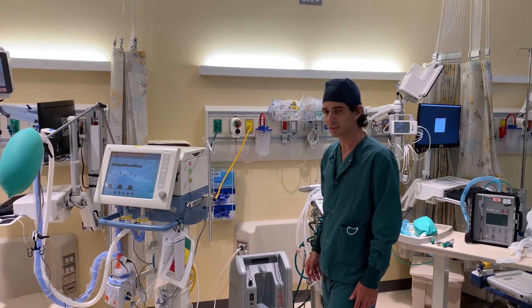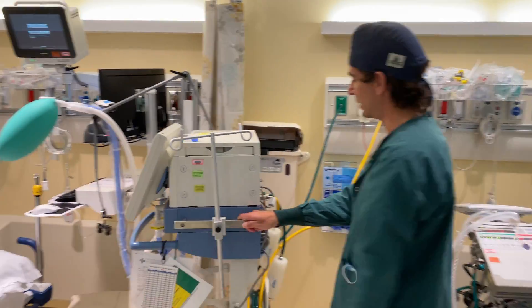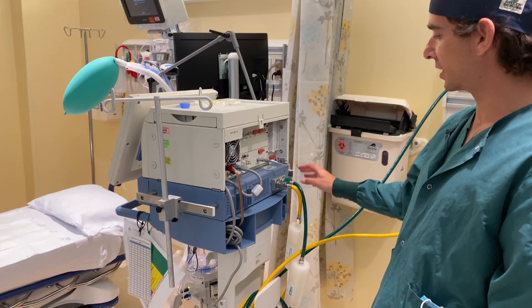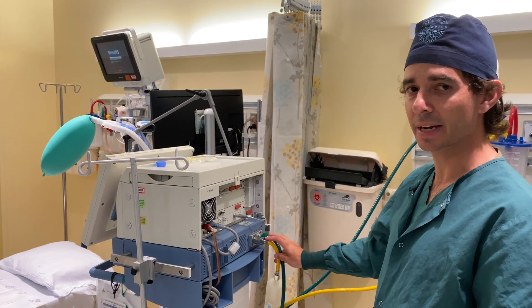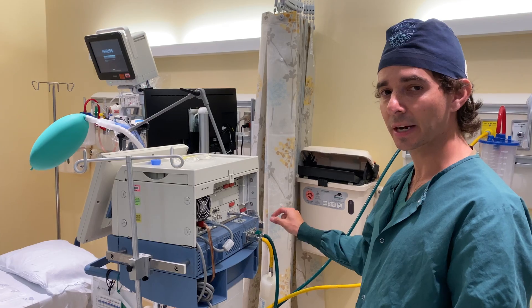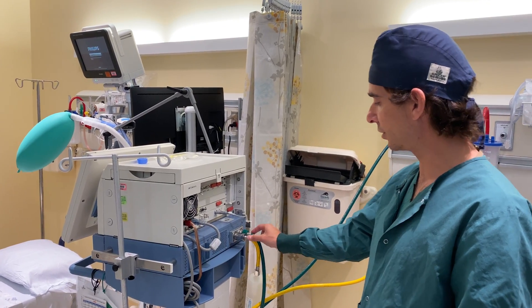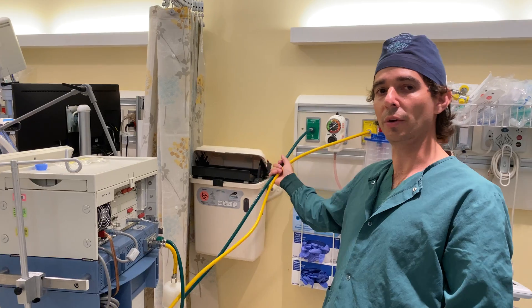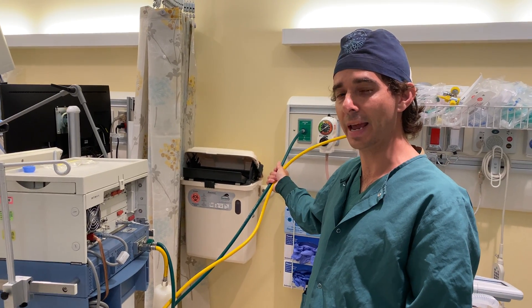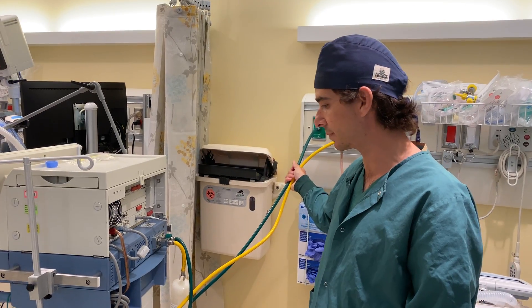First we'll start with this traditional ICU ventilator. Draw your attention to the back. Most commonly a traditional ICU ventilator is going to have two gas inputs — high-pressure gas inputs to the back — compressed air and compressed 100% oxygen. These are generally going to go into a wall source, although they could also come off of a regulator from a tank, which would also be considered a high-pressure oxygen source.